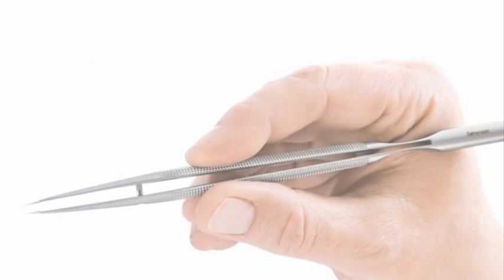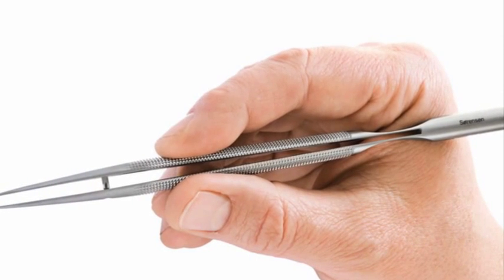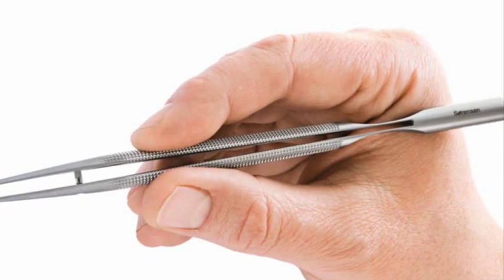When holding the instruments, use this hand position, holding the needle holder like a pencil, and providing four points of contact with the thumb, pointer, middle finger, and hand.